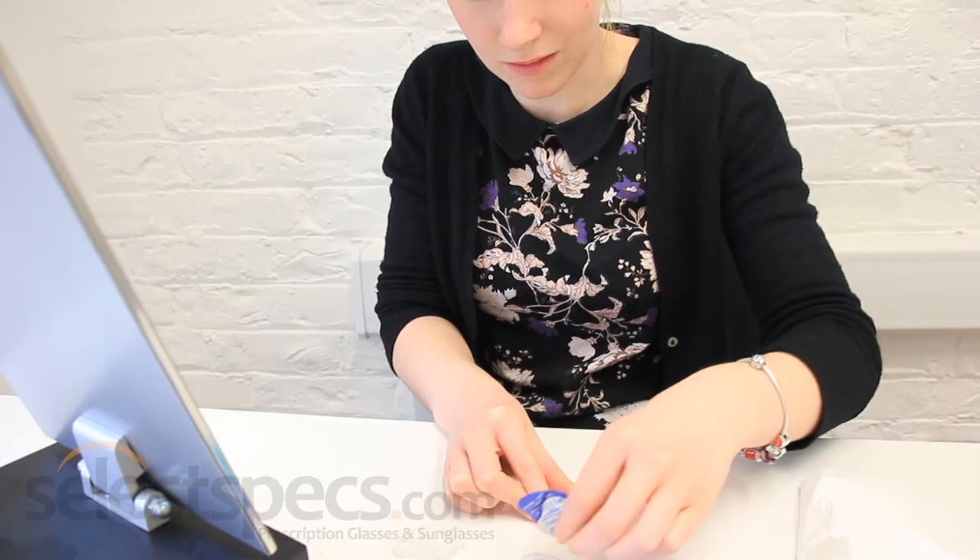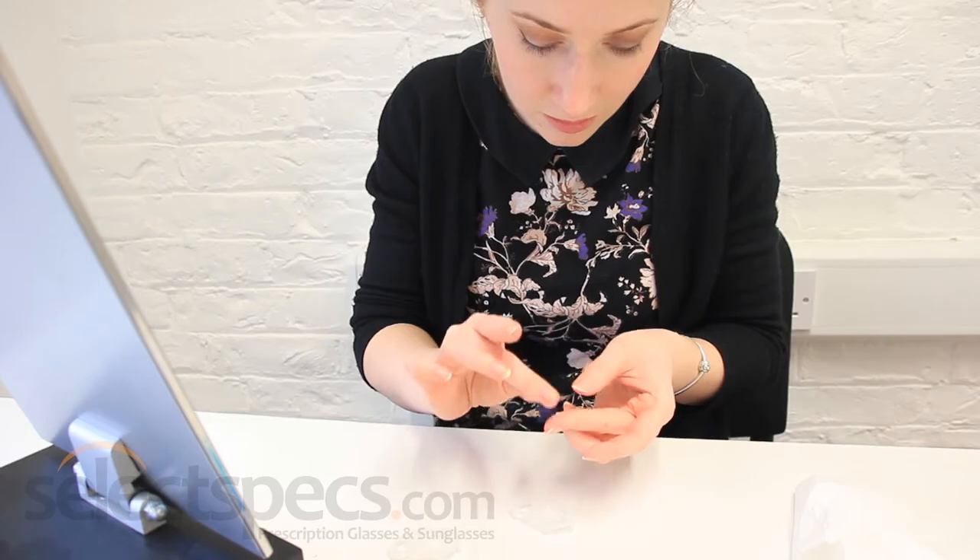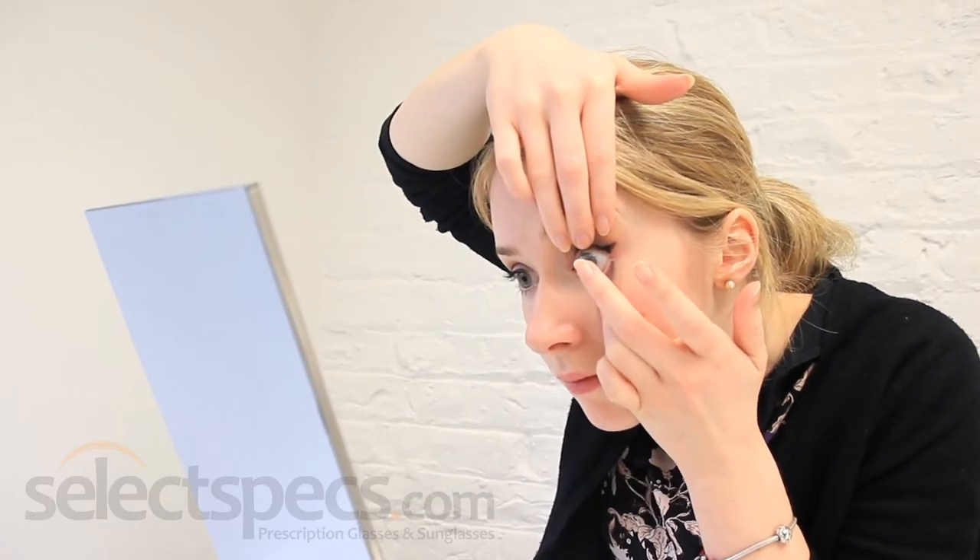Okay. It helps to blink, but your natural reaction is to blink — and you have to go against your natural reaction. It is actually quite difficult. I looked away then, didn't I? I'm a bit nervous doing it by myself.